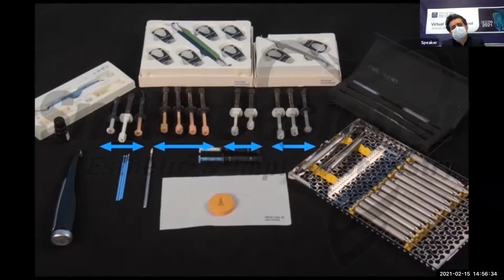For layering art or tooth reconstruction, composites or ceramics should be categorized by translucency. In this video, I use Vitalescence composite from Ultradent company. In this system, there are 4 series or grades of translucency. Grade 1 is opaque composites, the lowest translucency. Grade 2 is dentin composites. Grade 3 is enamel composites. And grade 4 is translucent composites, the highest translucency.